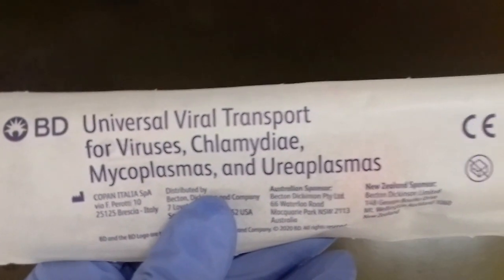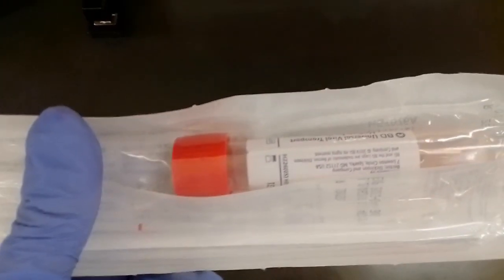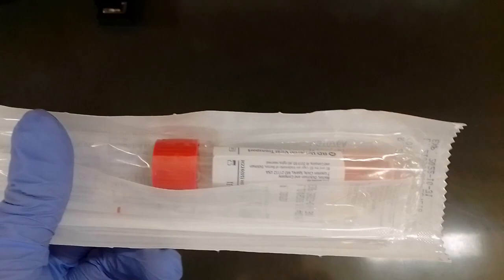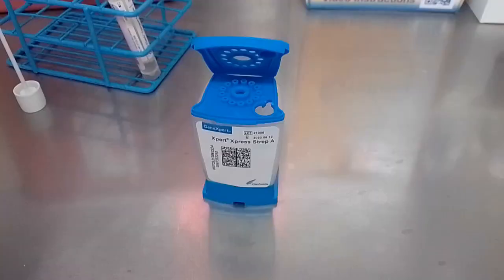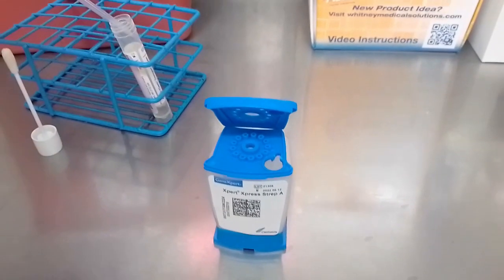transport media type swab. So a swab you would use for something like COVID, for example, is not suitable at our place. We don't have it validated for strep testing because this is looking for a bacterium, and obviously a COVID swab or a viral transport media type swab is looking for a virus. So that's the most important thing because it sometimes gets collected improperly, so just make sure that it's the right swab.